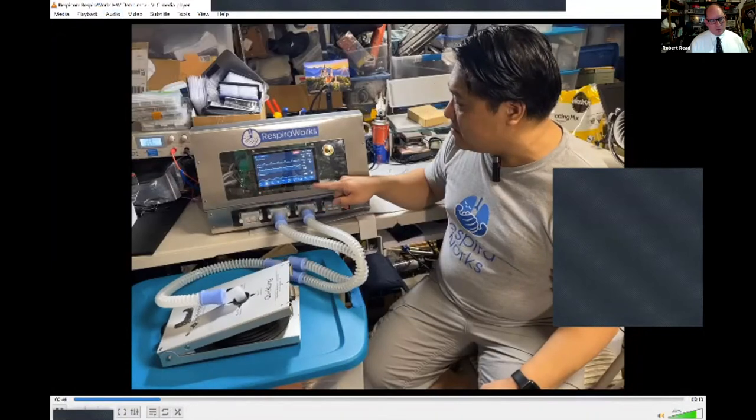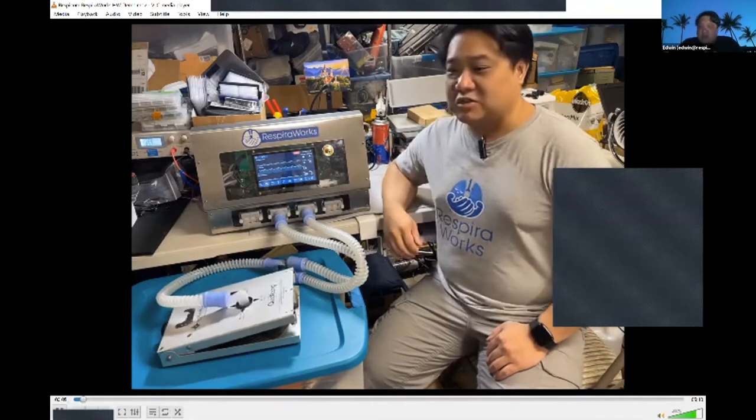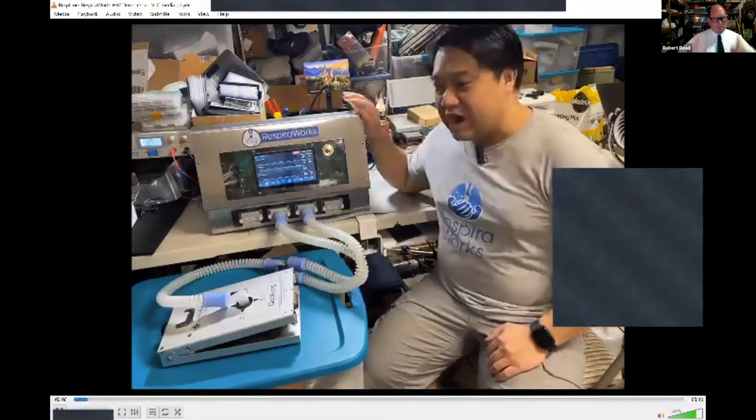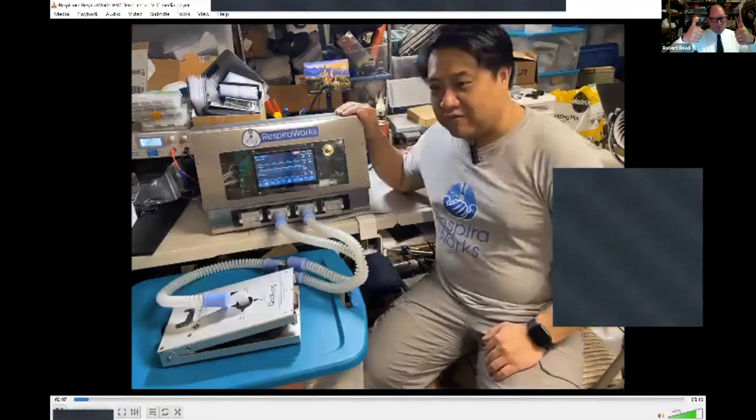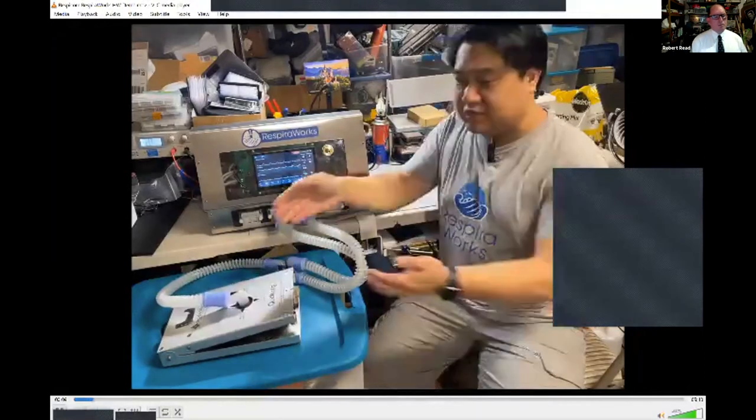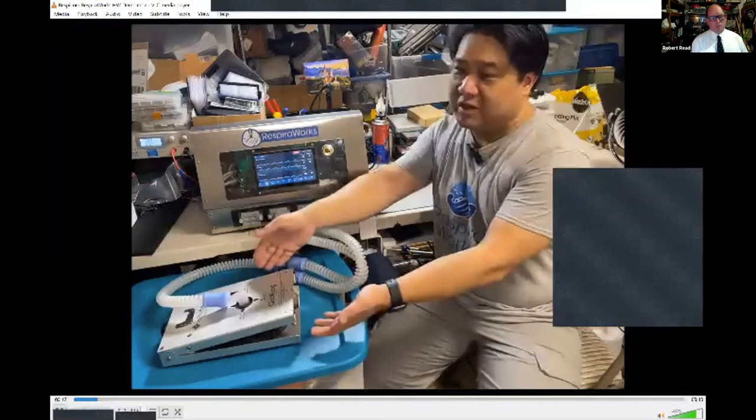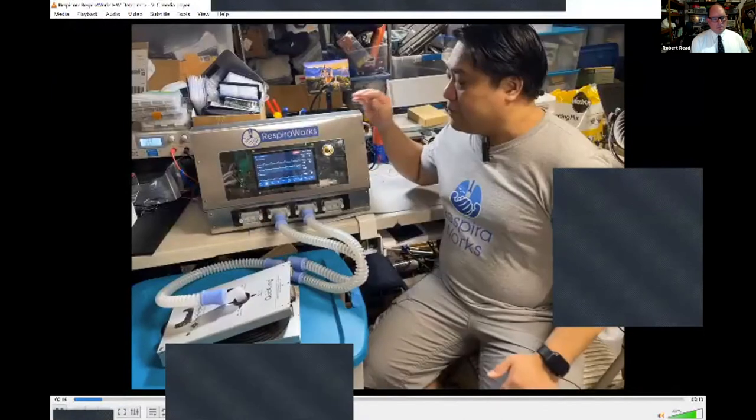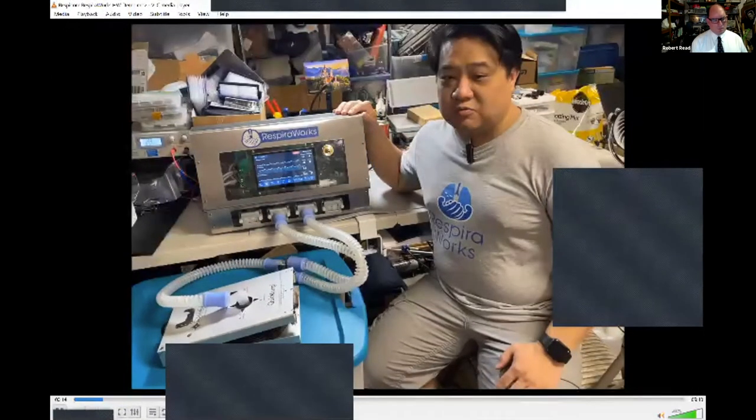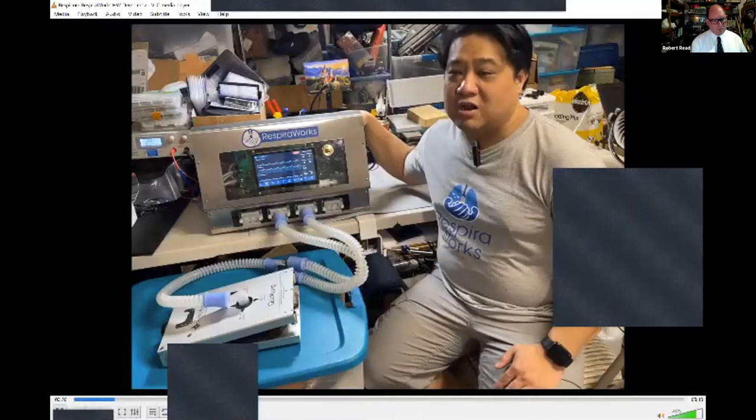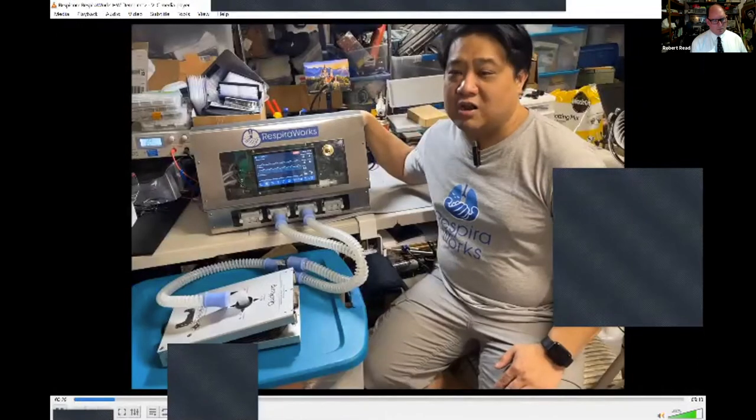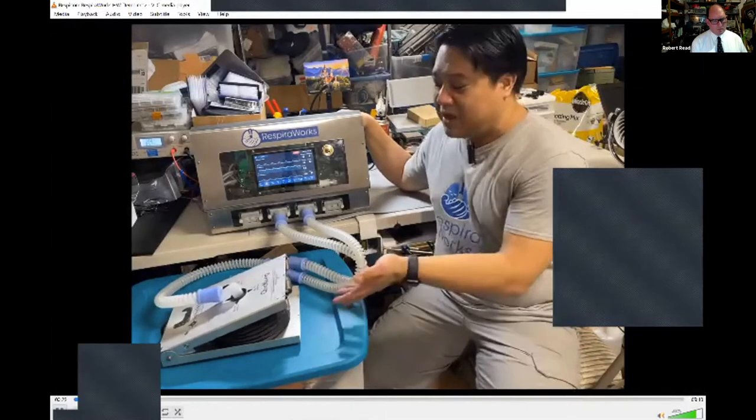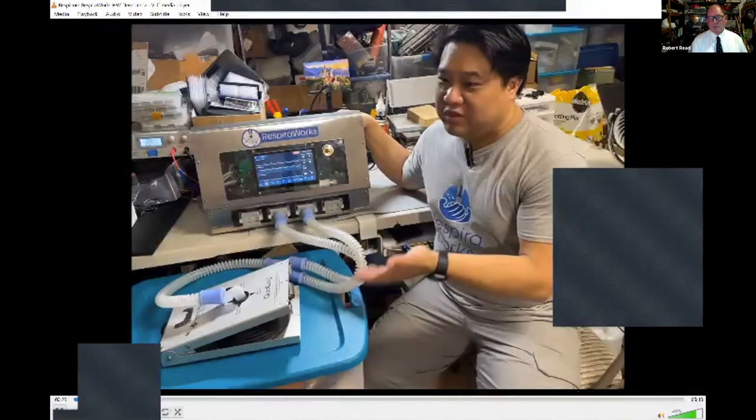So for example, I'm here today at RespiraWorks to give a quick hardware demonstration of our ventilator. Right now, the ventilator is connected to a quick lung here, which simulates the patient's lungs. Now, if the patient doesn't require supplemental oxygen, this ventilator is blower based, which means it can run only on electricity, providing the patient with ambient air that it draws in through the blower.